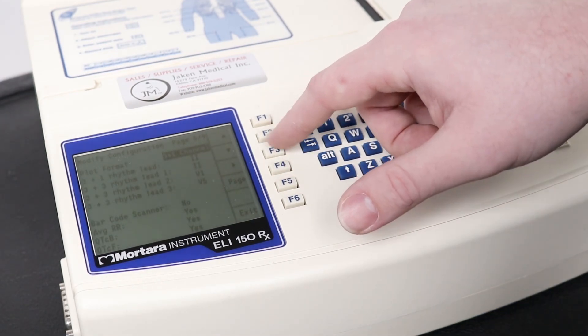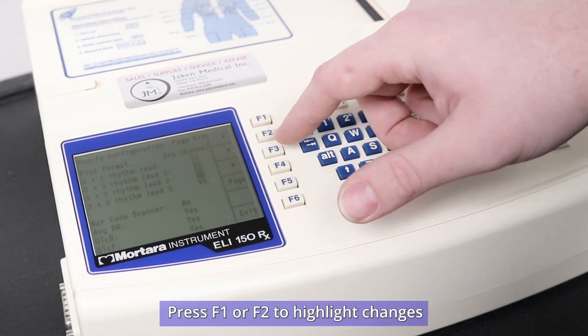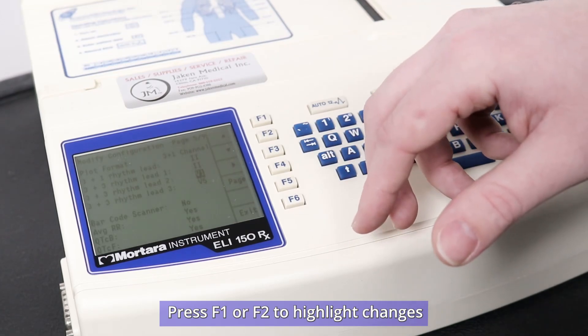To change anything, use F1 and F2 to highlight and change to whatever customization that you would like.